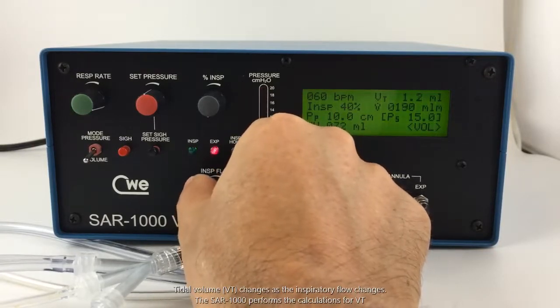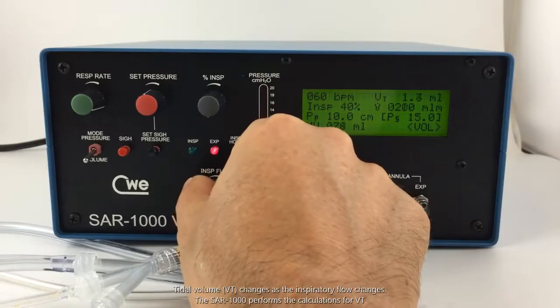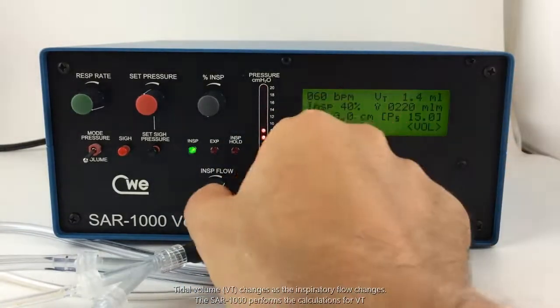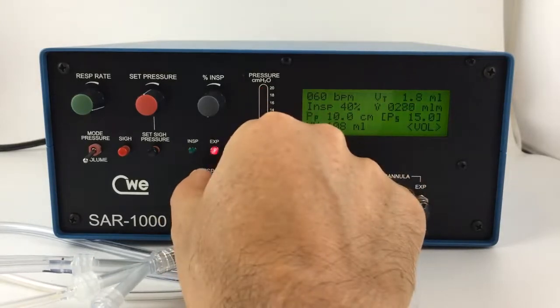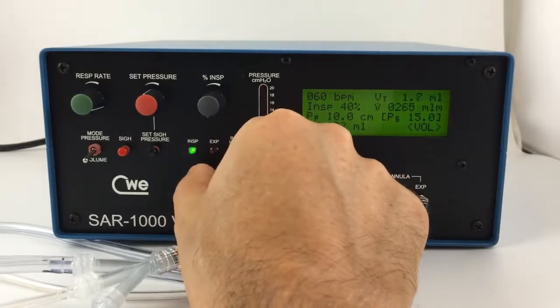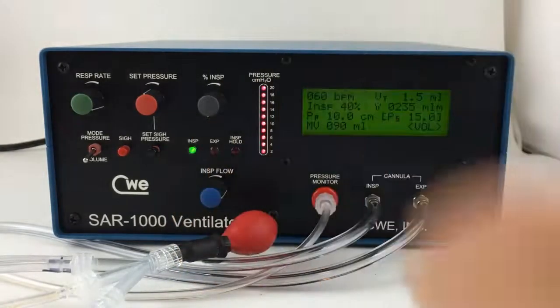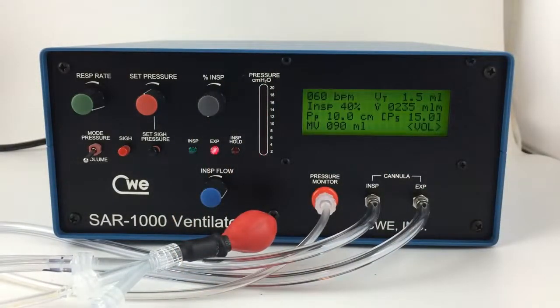Note that as I change the inspiratory flow, the tidal volume changes. This completes a brief explanation of volume mode.